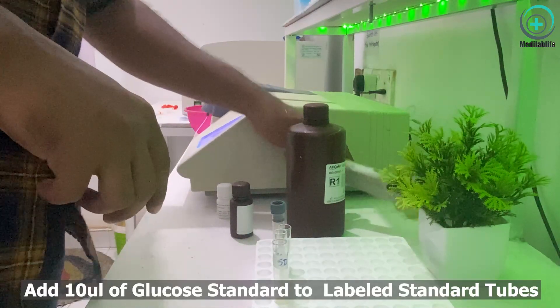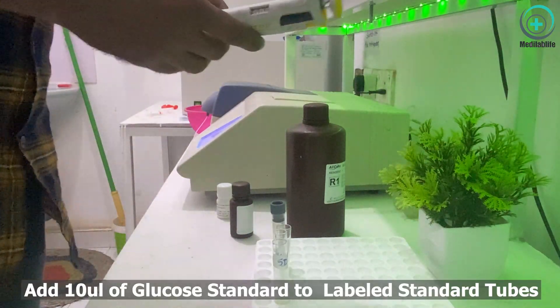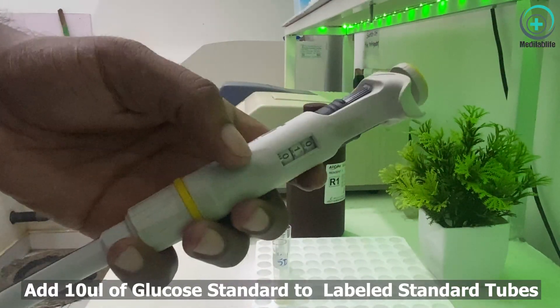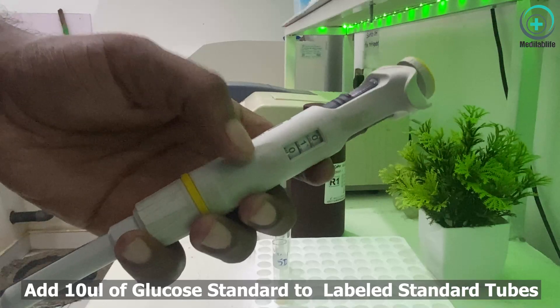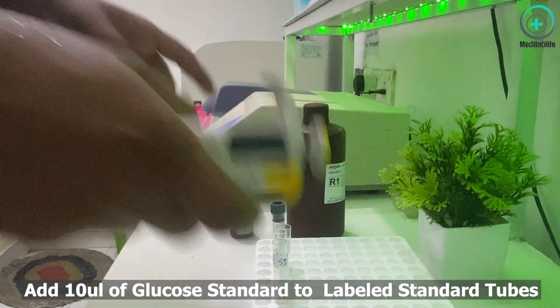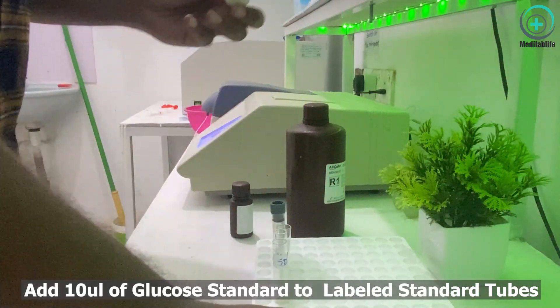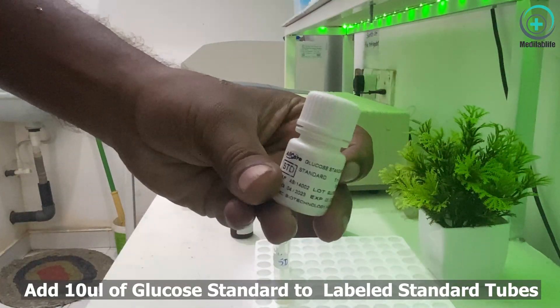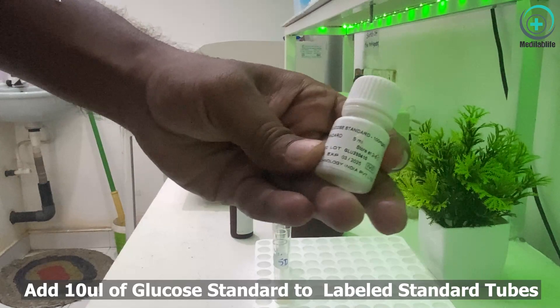Then we get our 10 microliters using our micropipette. For the standard, we draw it up and add 10 microliters of standard to our standard tube.